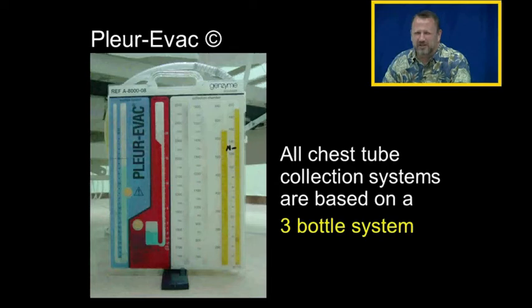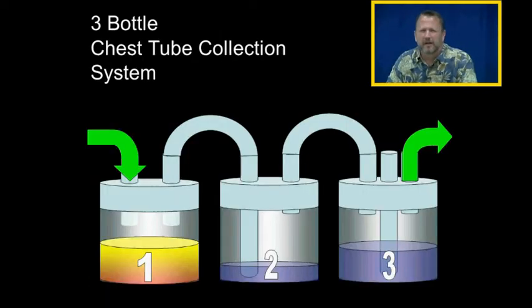All chest tube collection systems are based on a 3-bottle system. Here's our 3-bottle chest tube collection system.